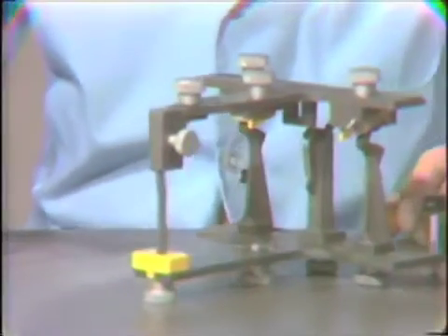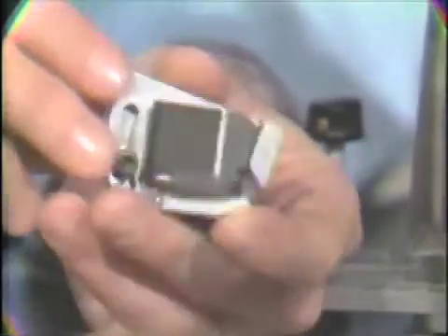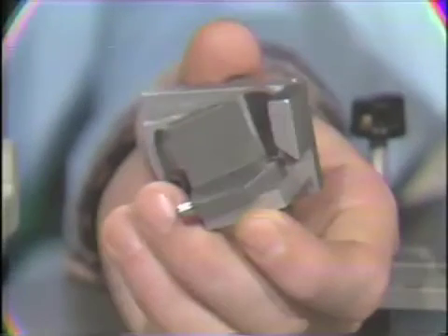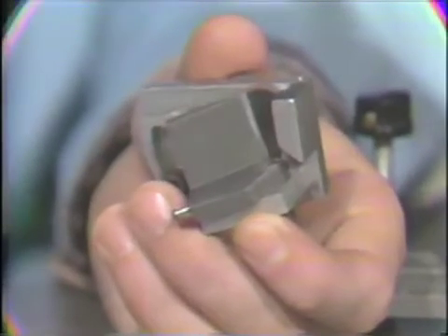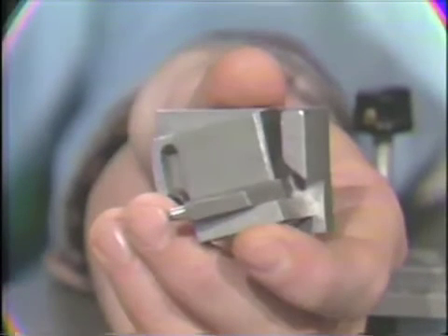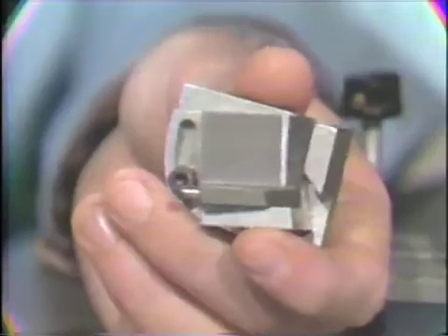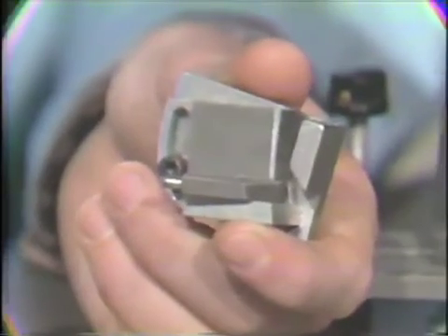Now, other parts of the TMJ system include a mechanical equivalent condylar table, which would put it in pretty much the same category as the Whip Mix articulator, because it's an Arcon type articulator. And these are set with check bites, very similar to the other semi-adjustable articulators.